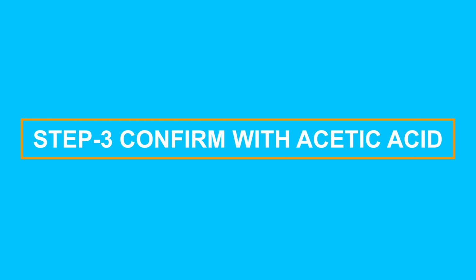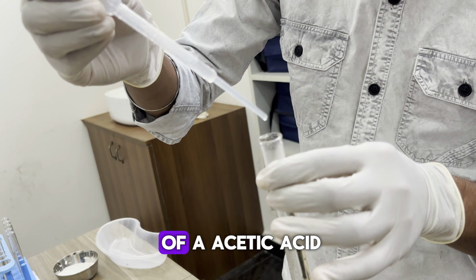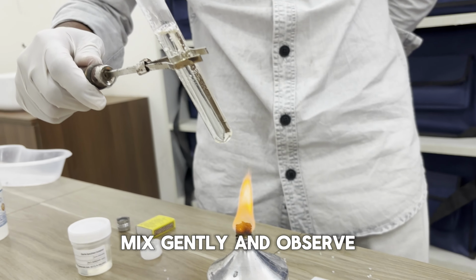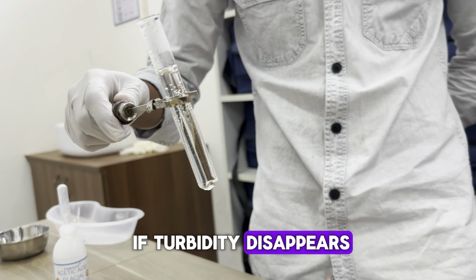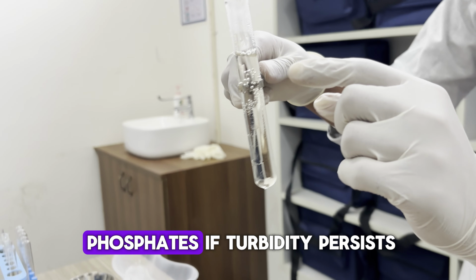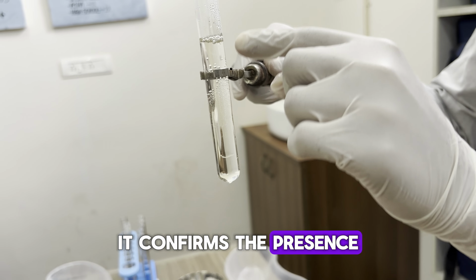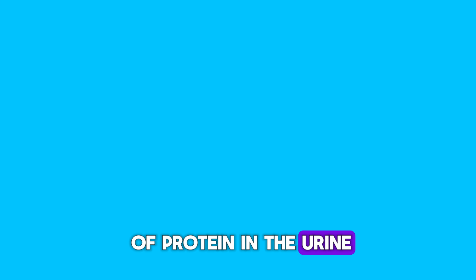Third step, confirm with acetic acid. Add 2-3 drops of acetic acid to the heated sample. Mix gently and observe. If turbidity disappears, it was due to phosphates. If turbidity persists, it confirms the presence of protein in the urine.